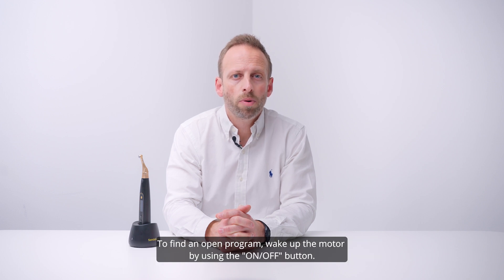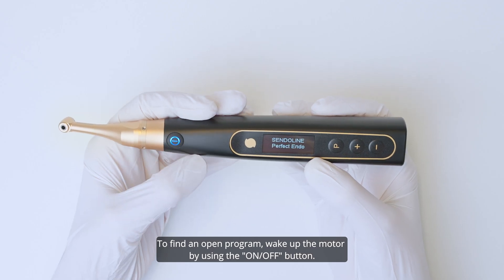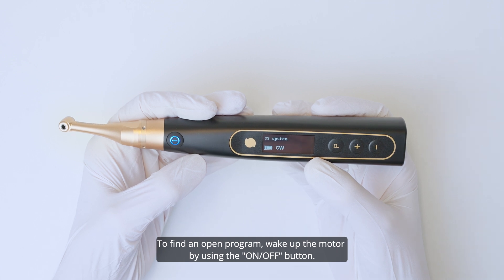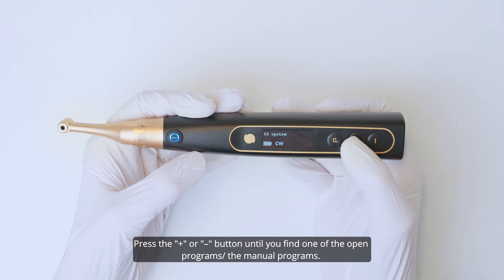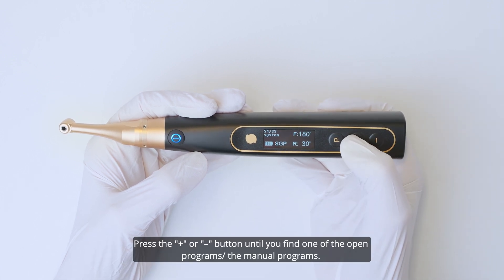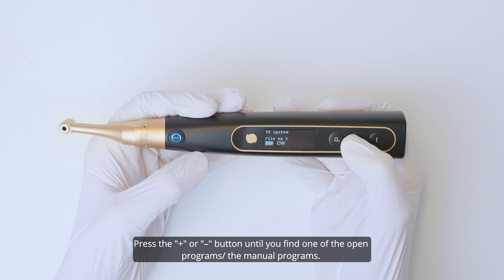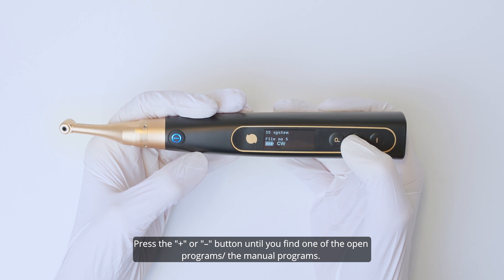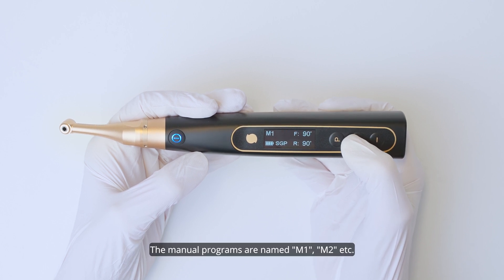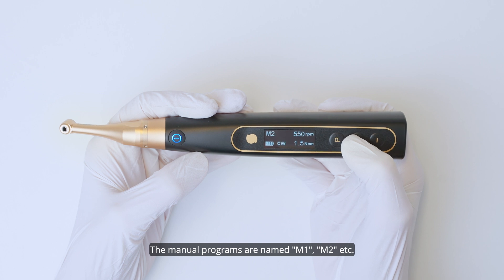To find an open programme, wake up the motor by using the on/off button. Press the plus or minus button until you find one of the open programmes or manual programmes. The manual programmes are named M1, M2, etc.